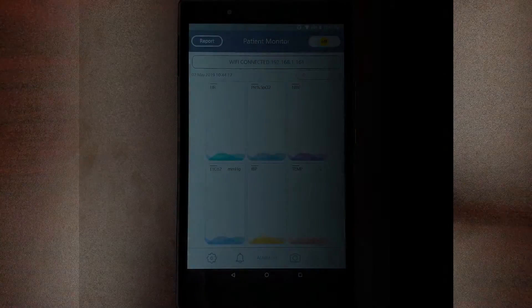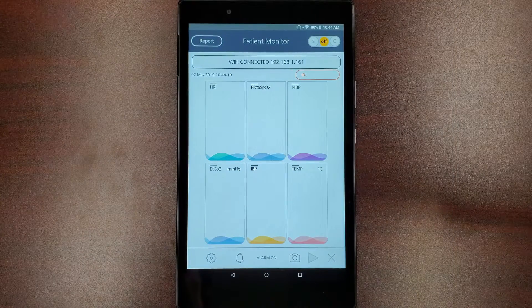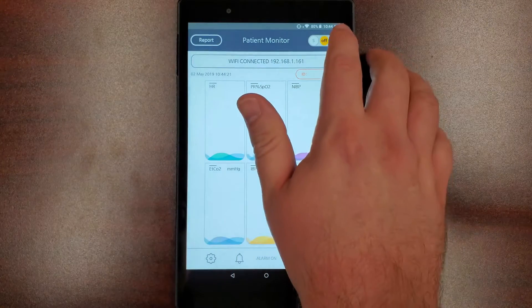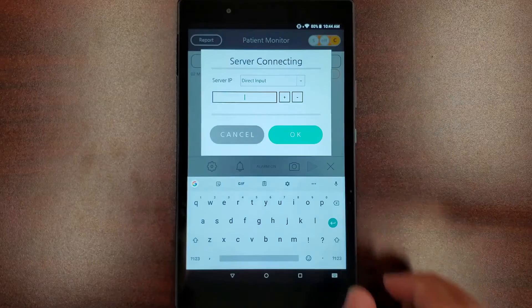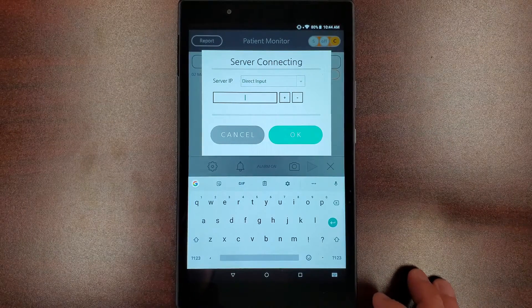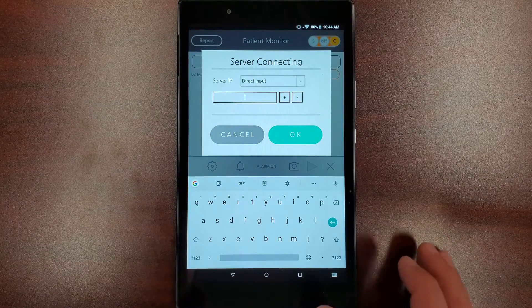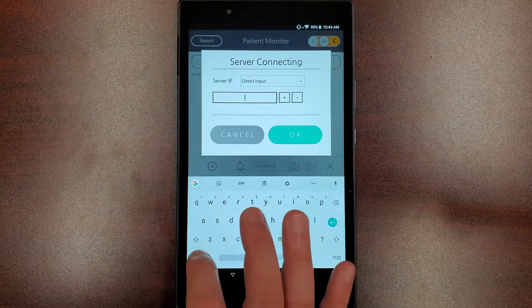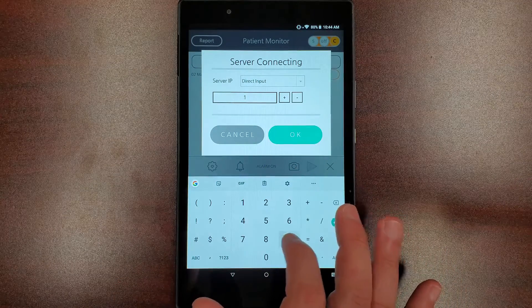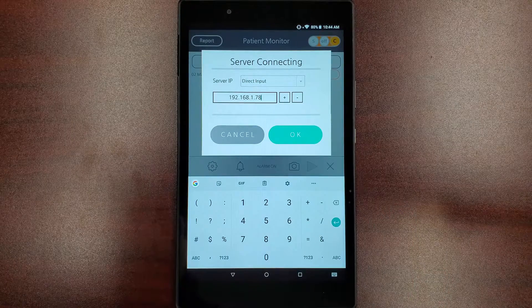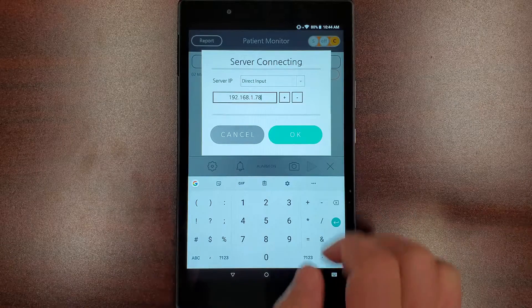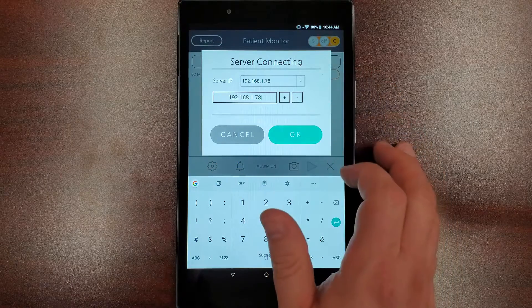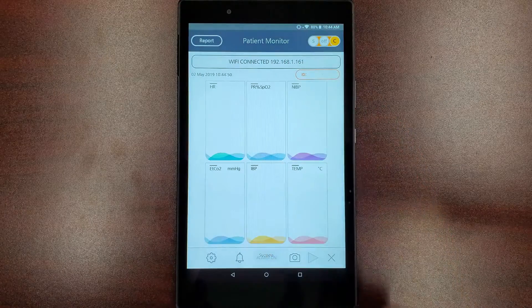Going back to the BT Link mobile app, tap the C in the upper right-hand corner to turn on client mode. A window will pop up that says Server Connecting. In the lower blank field, type in your computer's IP address and hit the plus icon to add it to the IP address list. A success message should appear in the bottom of the screen.